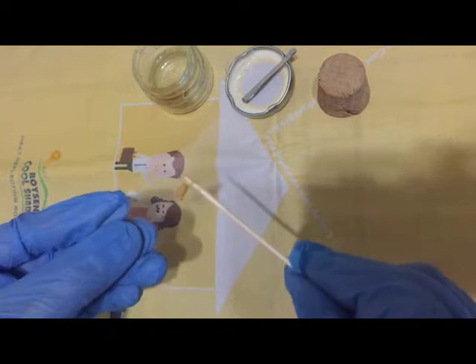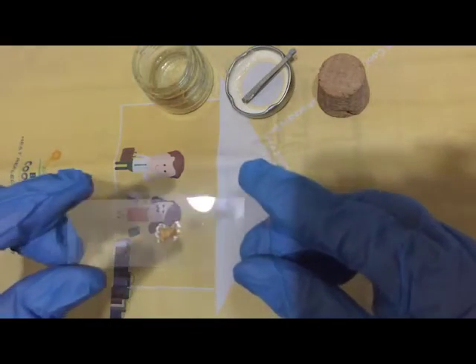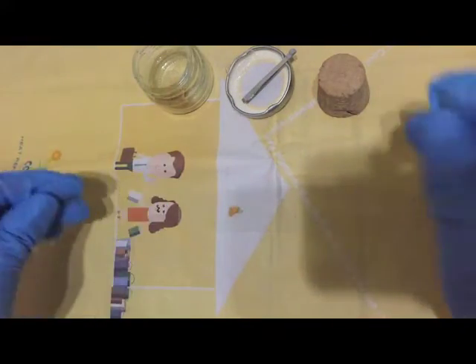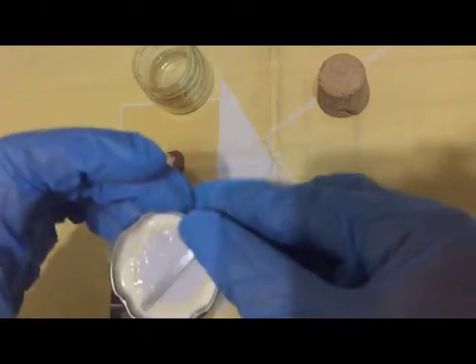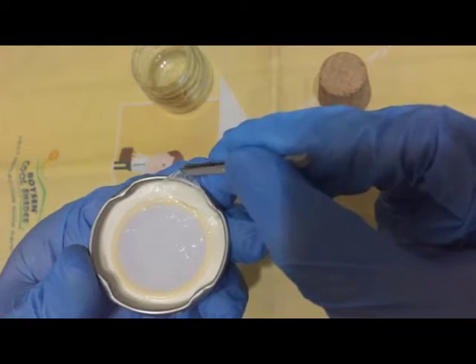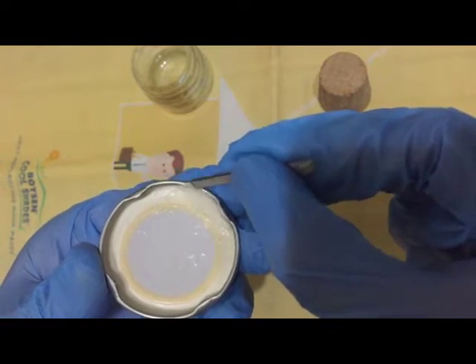Cover the stool with the cellophane which was previously soaked in glycerin solution. So you get your cellophane material and, using the tweezers or the forceps, gently lift them up.